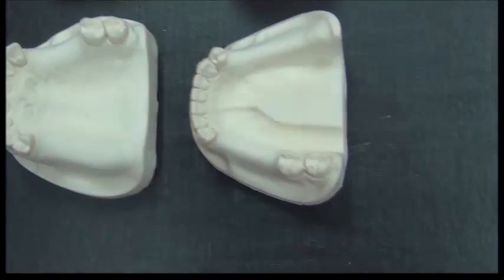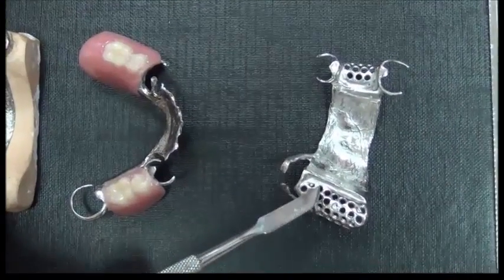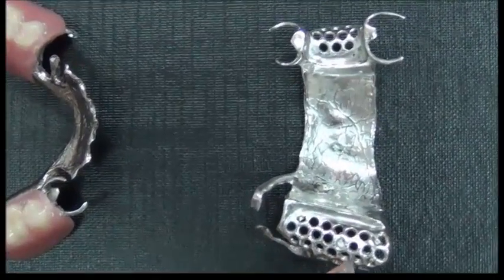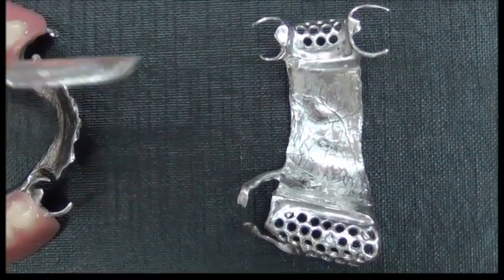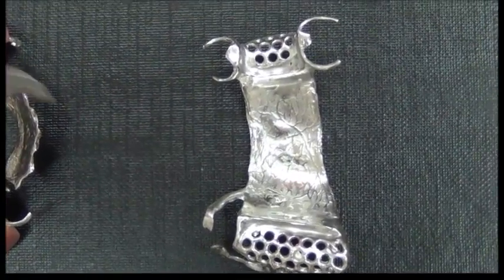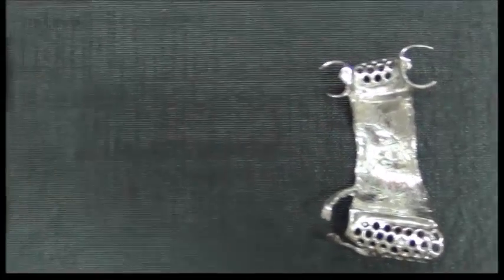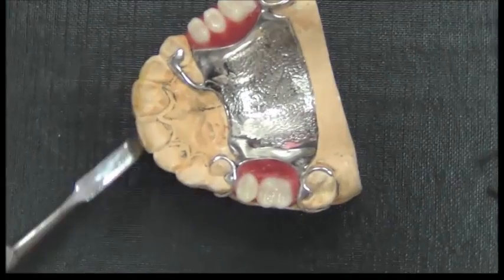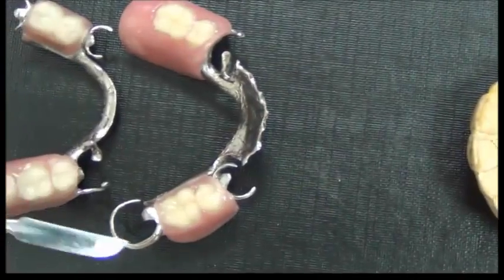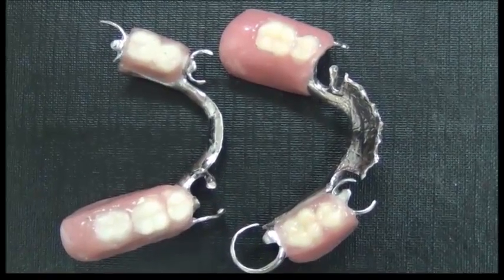Partial dentures come in multiple forms. Today we will be talking about a specific type that uses metal in it. This is different from the one you began your labs with, where you have done the partial denture totally out of acrylic. We are now using chrome cobalt as a material for the removable partial denture. So we need to construct a framework. On the framework, we need to add teeth, and then we're going to change wax into actual acrylic, and we will have different designs of removable partial dentures depending on the patient's situation.